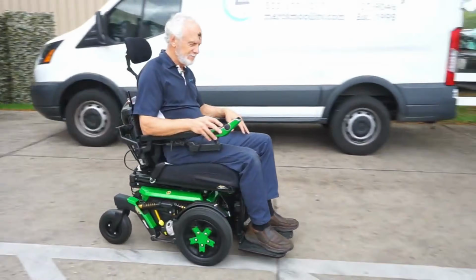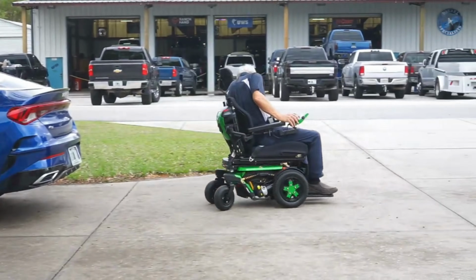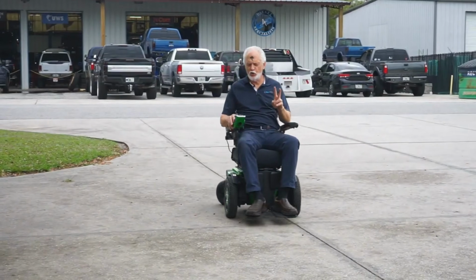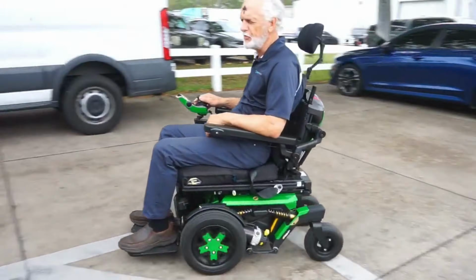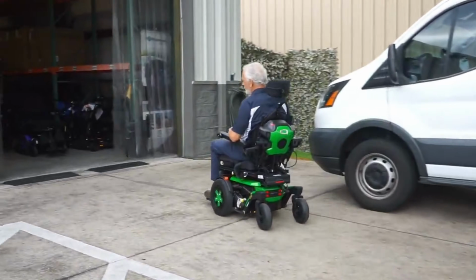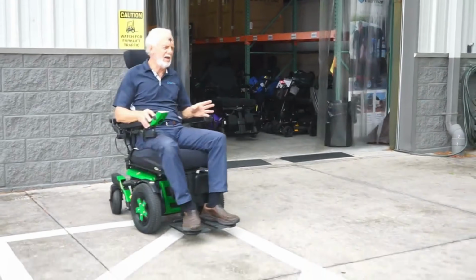Due to having your front wheel configuration, you're able to climb over objects. It's not like you're going to be going over curbs, but thresholds, stumps in the yards, things like that are way easier to drive over with the front wheel configuration, because your power is located with the first point of contact with your drive wheel. So if you are looking for something that you need for inside, but also you are going to be taking it outside on non-paved surfaces, then a front wheel driven configuration might be the best one for you.